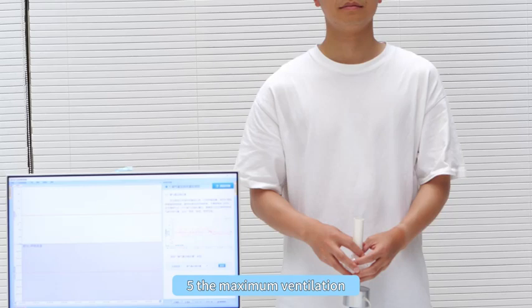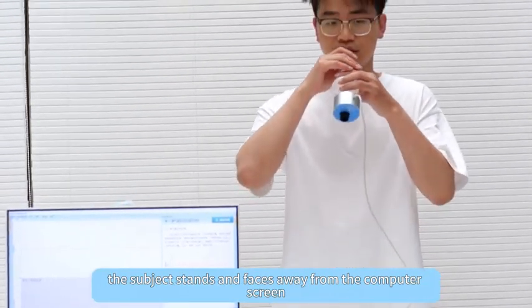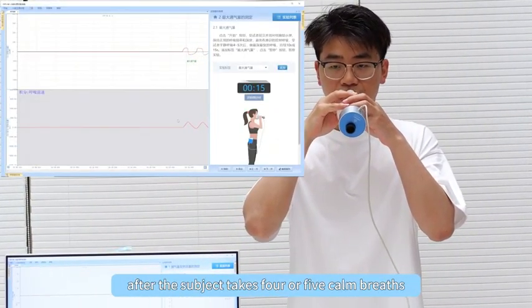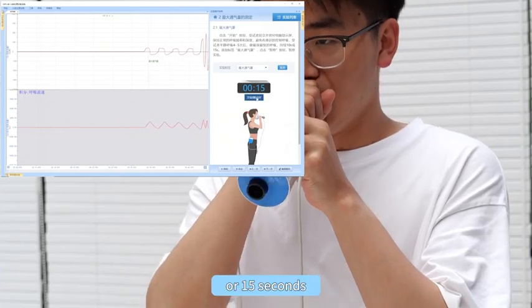Fifth, measure the maximum ventilation. The subject stands and faces away from the computer screen. Maintain a normal breathing rate and depth. After the subject takes 4 or 5 calm breaths, take the deepest and fastest breath for 10 or 15 seconds.